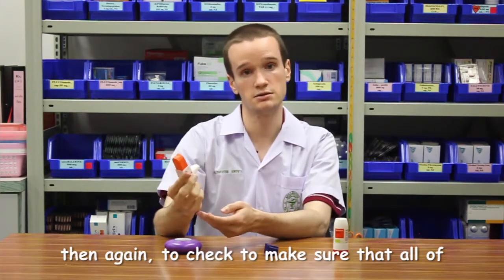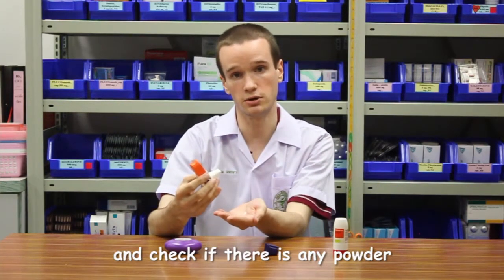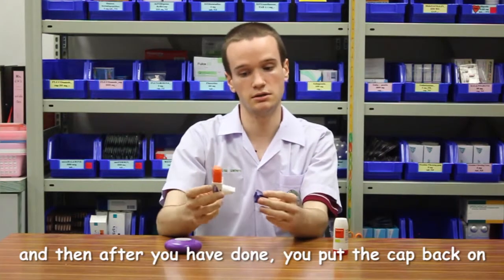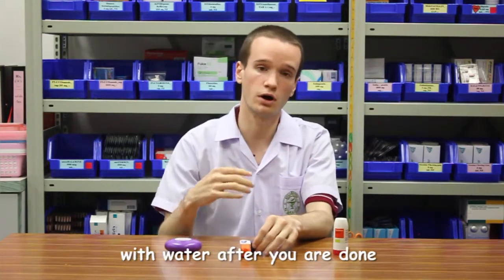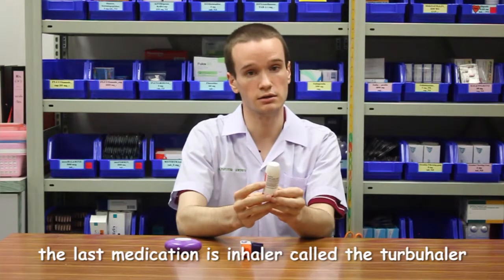And then again, to check to make sure that all the medication has gotten into your lungs, you can dump it out into your hand and check to see if there's any powder. And then after you're done, you can put the cap back on. And then again, make sure that you're rinsing your mouth out with water after you're done to prevent thrush. The last medication, or inhaler, is called the turbohaler.